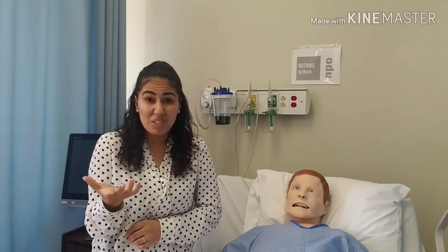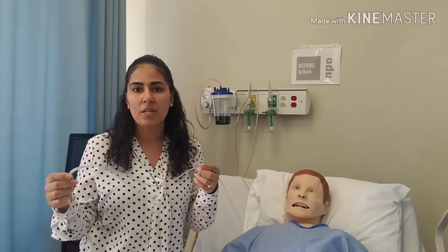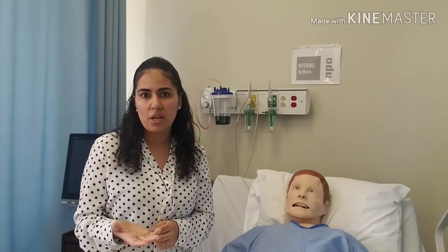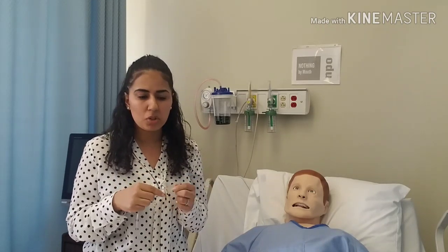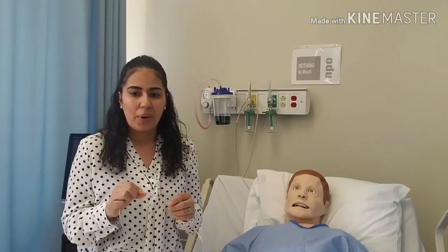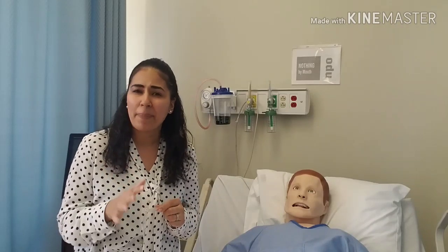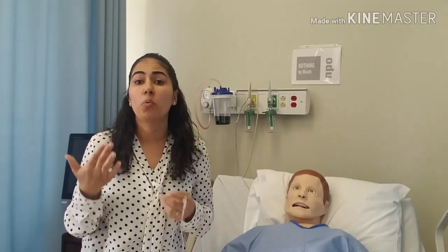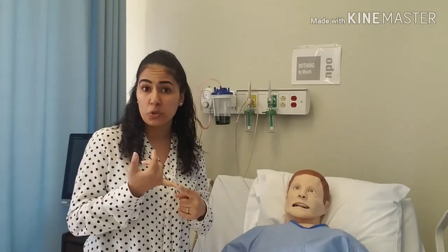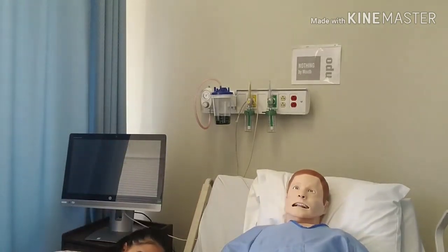I have seen six liters delivered on a patient having a short procedure with a little sedation where they want to give high-flow oxygen. But typically around four to four and a half liters. If my patient isn't doing well, what would I be looking for? Well, an SpO2 — we'd definitely want a pulse oximeter to see what their reading is on room air as well as once they're on oxygen.